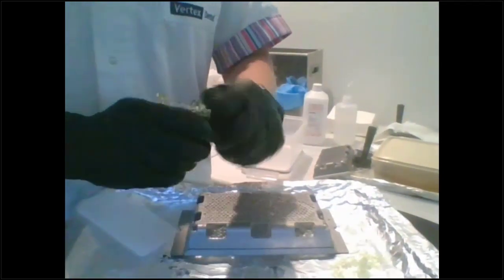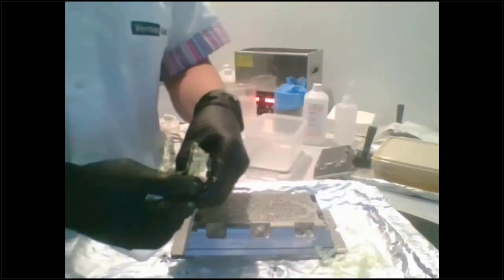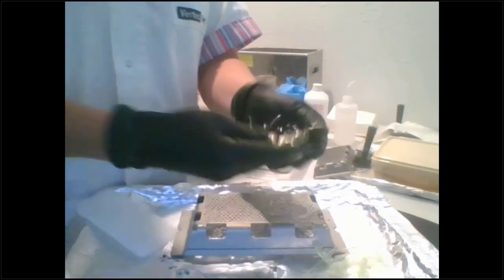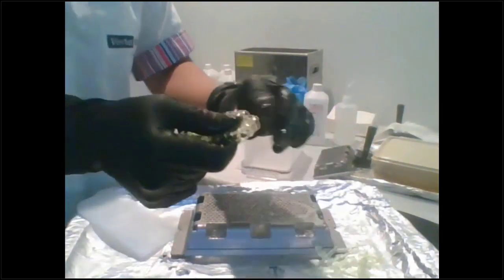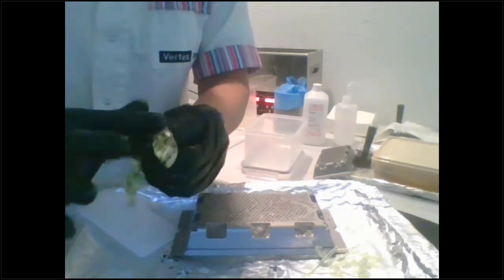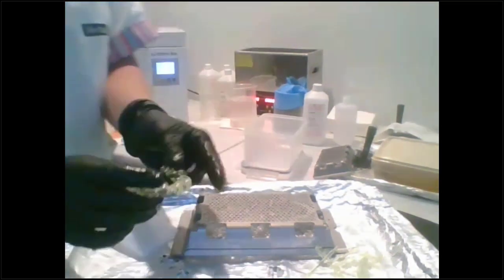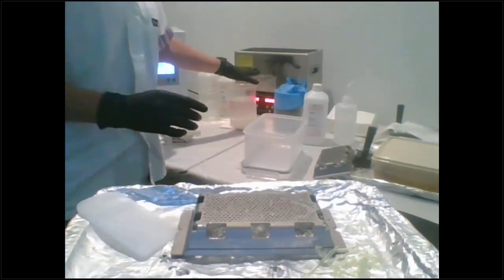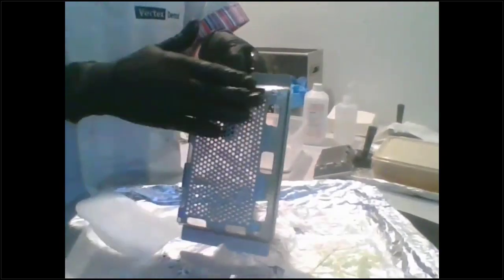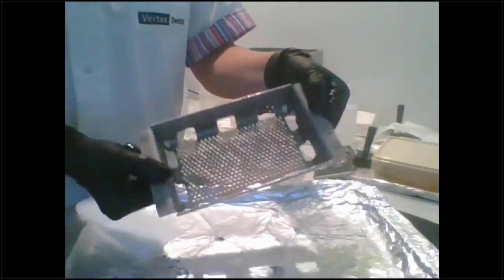Okay, so I'm just going to pull off my supports, and actually, like I told you, that support bar just comes right off. That was just for printing. So you just peel off your supports. This is like my favorite part. I've used so many printers, and I've never gotten this type of perk here to be able to just pull off my supports. Okay, so what you're going to do is put that in for 3 minutes, and then look at my tray. Some of the resins, it just comes right off, so you don't even have to punch them.